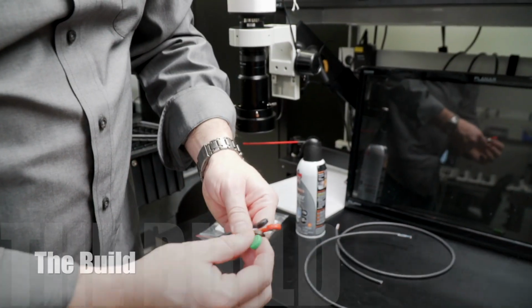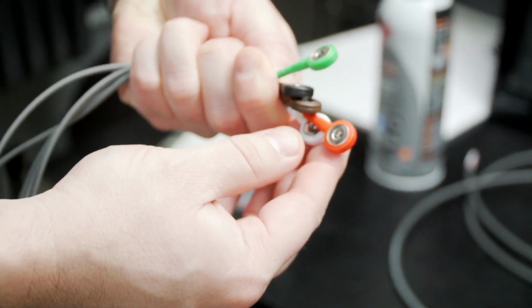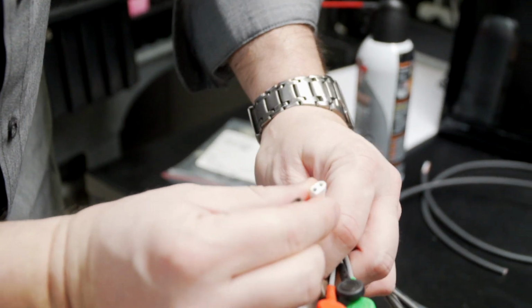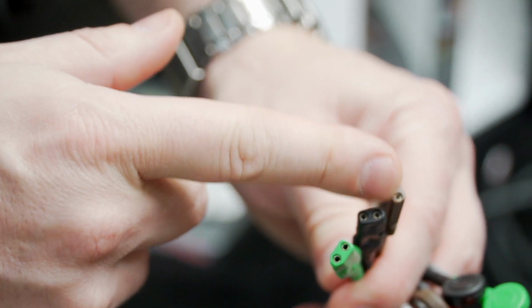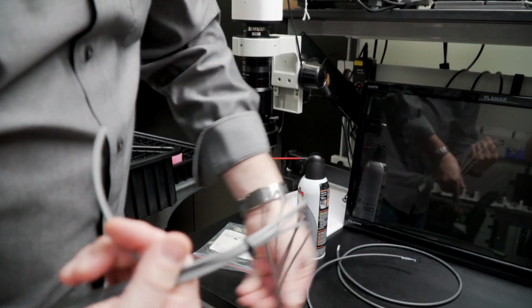Cabling is a specialized connector that hooks up to patient electrodes. You can see that they're color coded, and they have that special clip connector. The other end of the connector is a 2-lead which plugs into the transmitter. So one of these leads is actually relaying the signal information, and the other lead is used as an antenna.